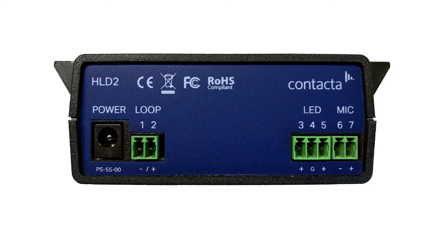On the rear of the unit are the power connection, loop input, LED input and microphone input.